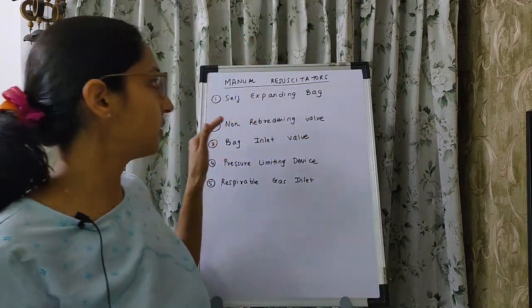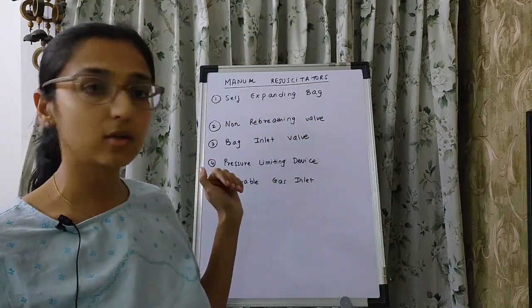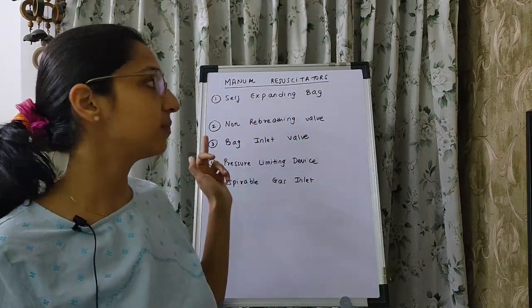Hi everyone, today we are going to understand the different parts of a manual resuscitator. Here are the different parts of the manual resuscitator.